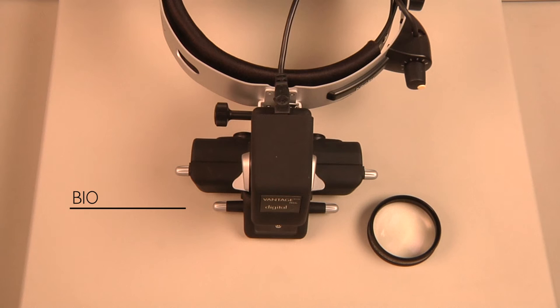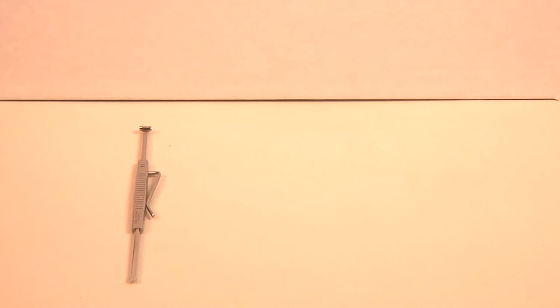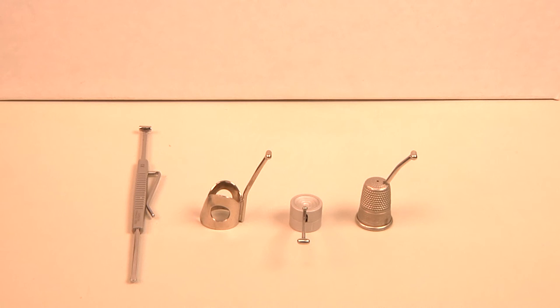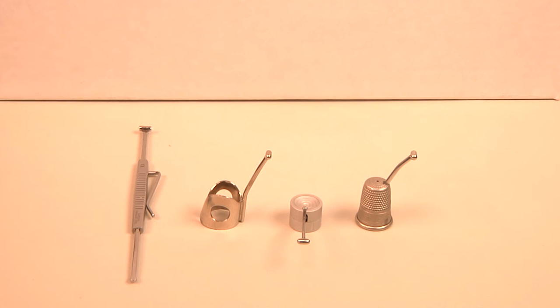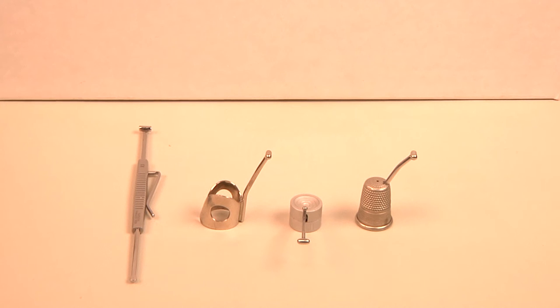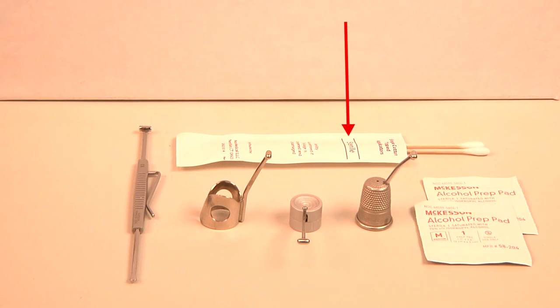Three pieces of equipment are necessary: a BIO, a 20 or 30 diopter condensing lens, and an instrument for indentation. Common indenter styles include the stylus, which can have a T-bar rounded tip or a flat paddle edge, and a thimble design that fits on the fingertip. The smaller the tip, the more concentrated the pressure. The most convex aspect of the indenter contacts the globe or eyelid. If an indenter cannot be located, a sterile cotton tip applicator may also be used.